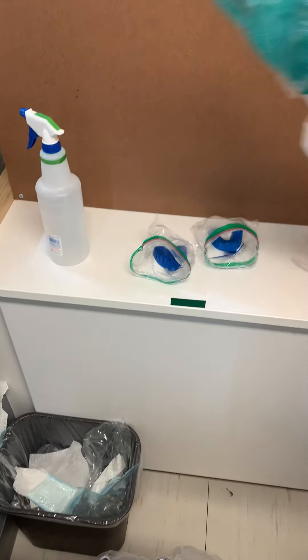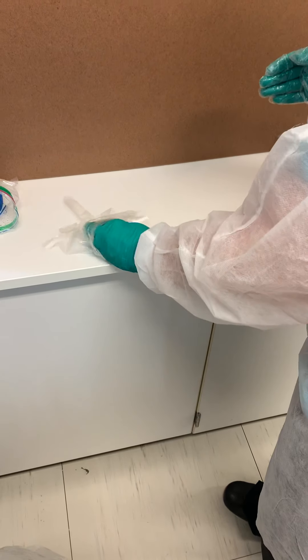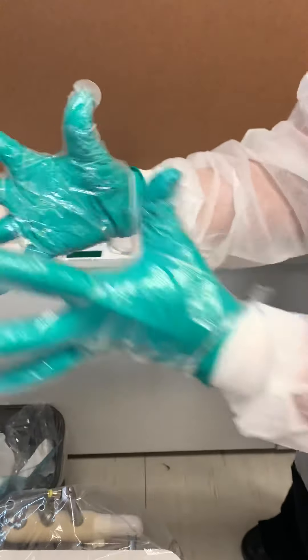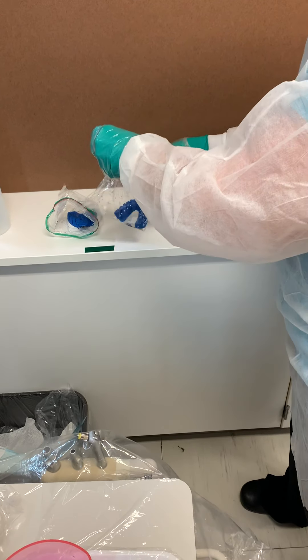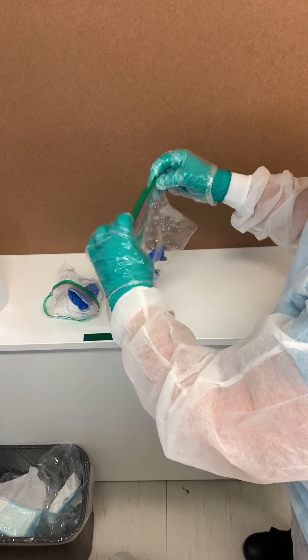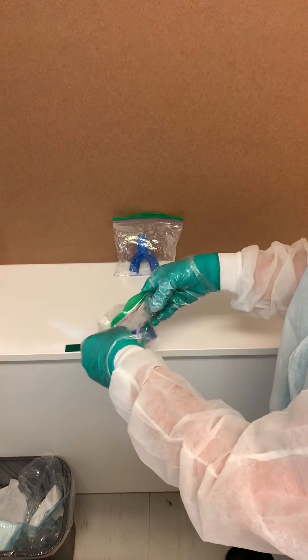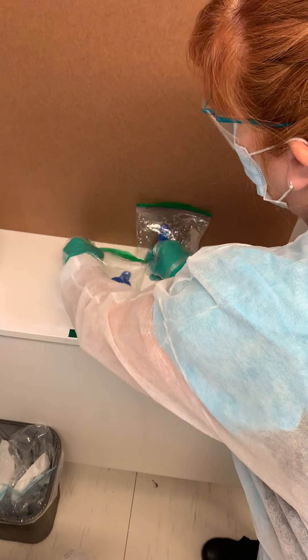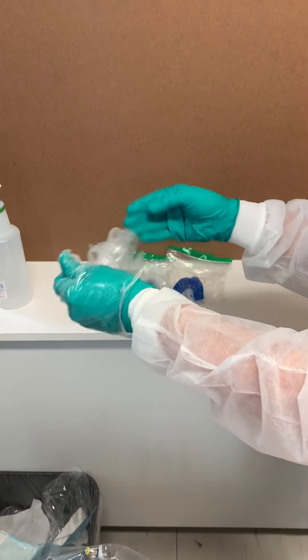So now we need to close the baggie. In order to close the baggie I need both hands, so I'm going to slide my other glove on. Now this hand is clean — I can touch the outside of this hand. Now I have two clean hands, and I'm going to seal up the baggie and let those sit. At this point I'm done with my over gloves, I can get rid of those.